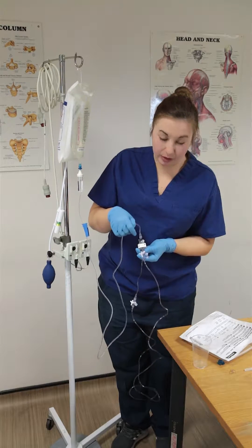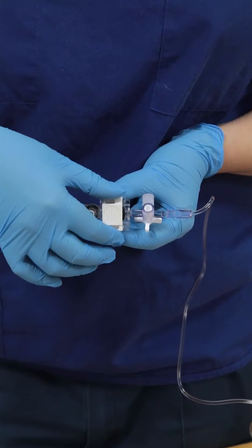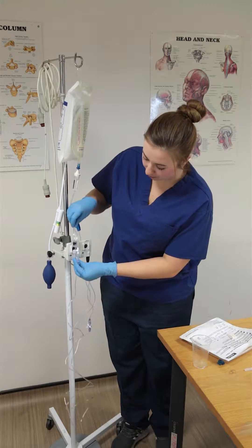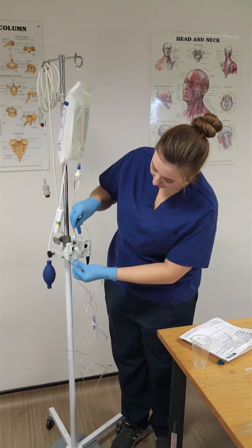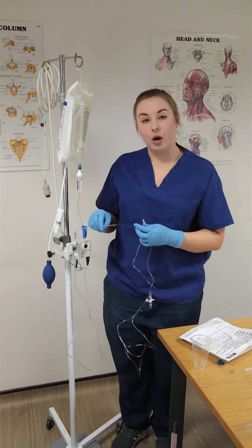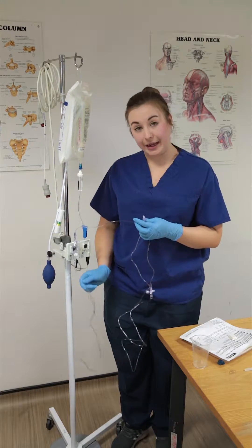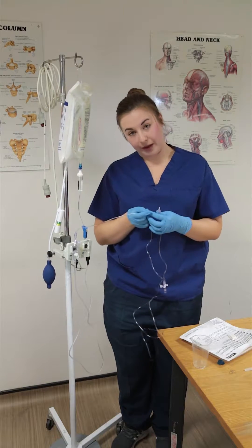This end has got a clip on it. I want to remove that — if I squeeze these two sides together it lets me take it off. The next thing I want to do is put it into my transducer set. If you try and put it in the wrong way it just doesn't fit — it actually goes in upside down. Turn it round, slide it in and it should click. Remember, often when we look at IV lines and giving sets, the line coming down is the one going to our patient, but on an arterial line it doesn't work that way. This line is going back up to the bag, and it's this line that comes out and goes to the patient.